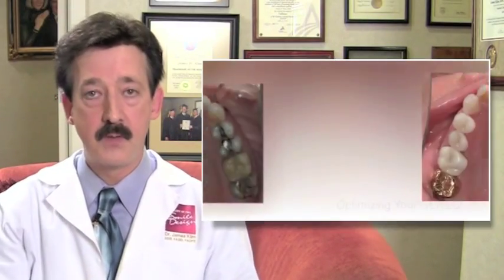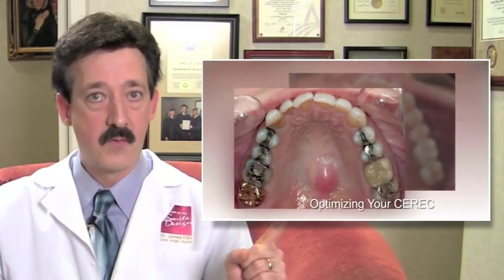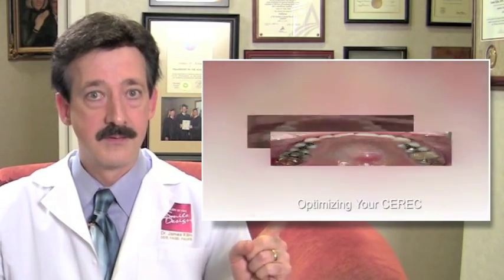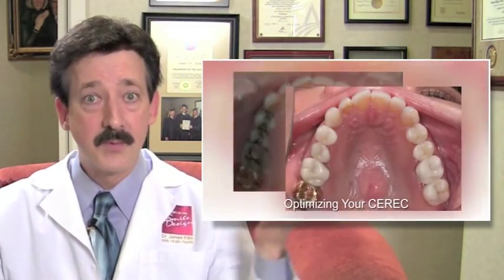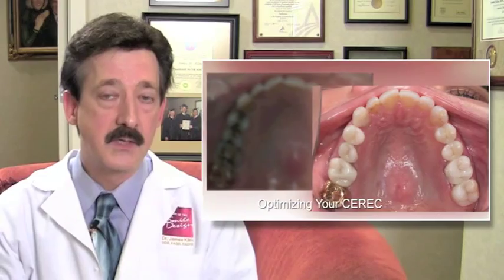Once you have those systems down, your restorations should drop in, whether you're doing one, two, three, or four. It's really simple once you pay attention to the details.